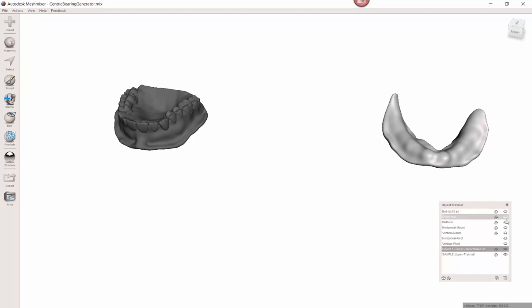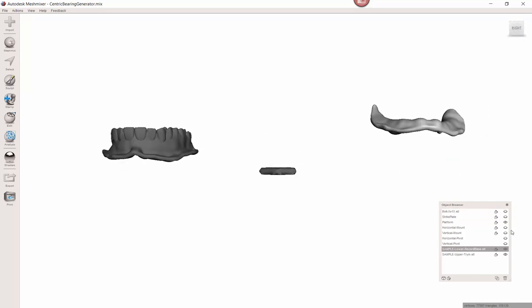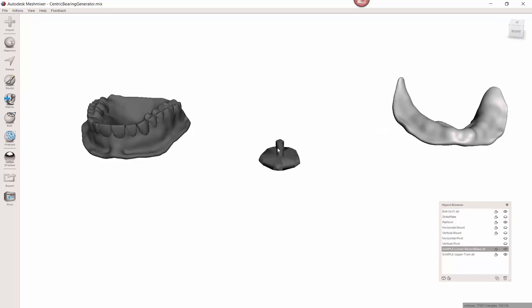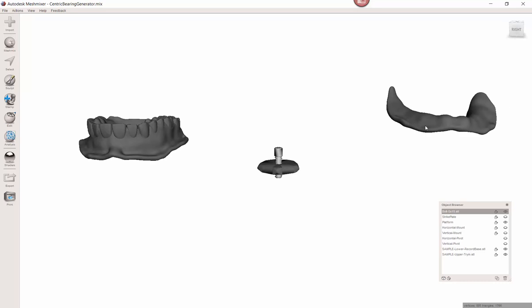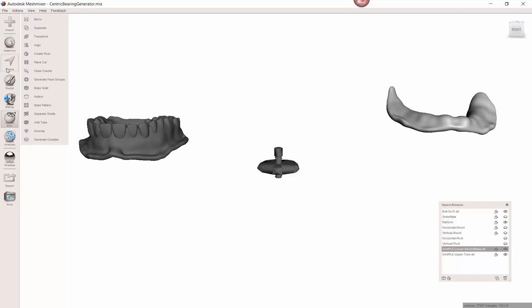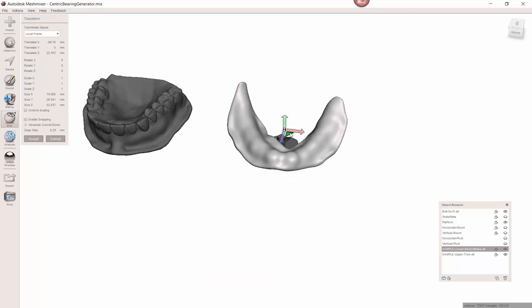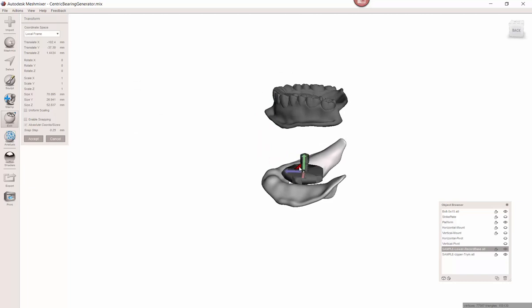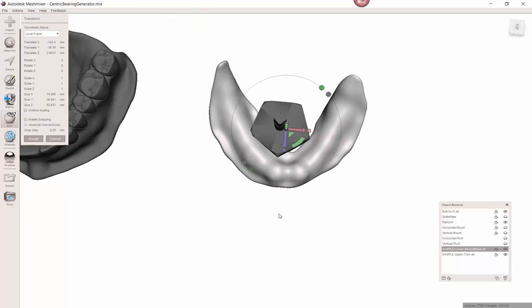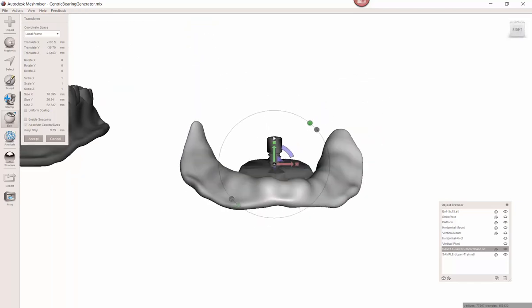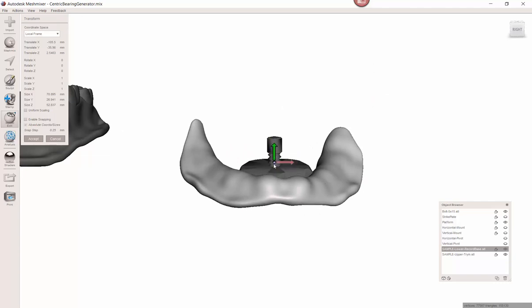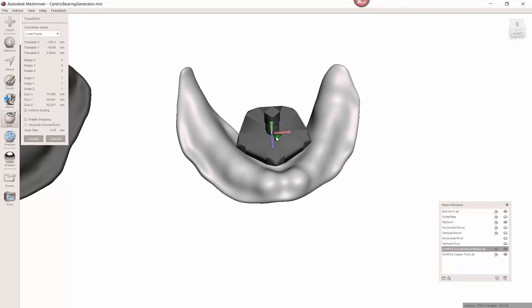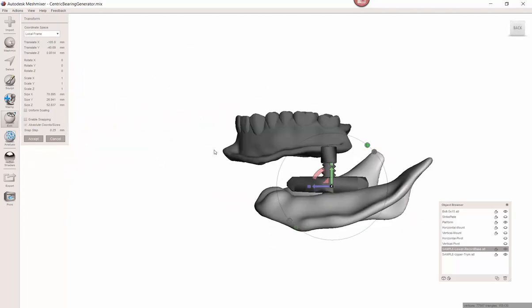So that's over here. Again, I'm just arbitrarily moving these just so we can sort of think about them as though we scan them with some scanner. And we've now dragged and dropped these files in here. So now let's turn on things. And let's turn on the platform in particular. So what I want to do is, and help me kind of visualize, this just helps me to see up and down the bolt. I'm gonna take this. I'm gonna press the T button or you can come over to edit. I'm so used to just pressing T. If you press T on your keyboard, it's a shortcut. I have not looked for that in years. Now I'm just going to slide this down. And I'm just kind of bringing it close. A little arrow allows me to move in two directions.